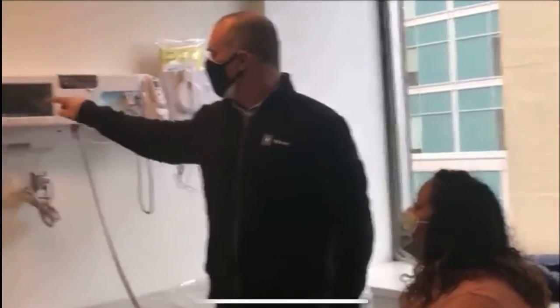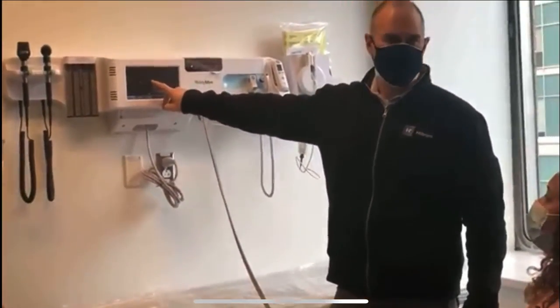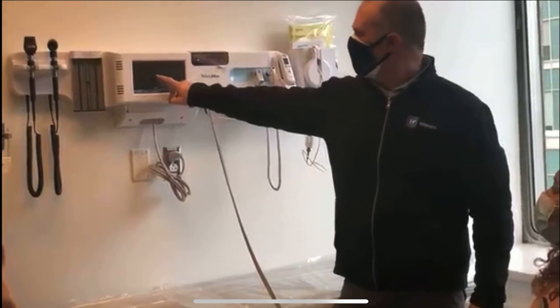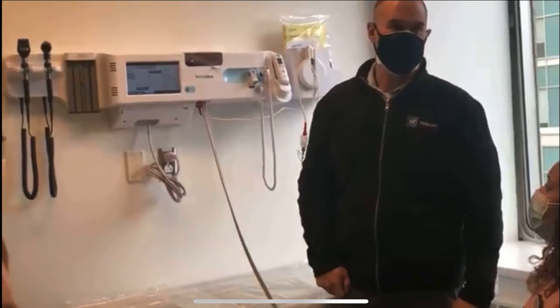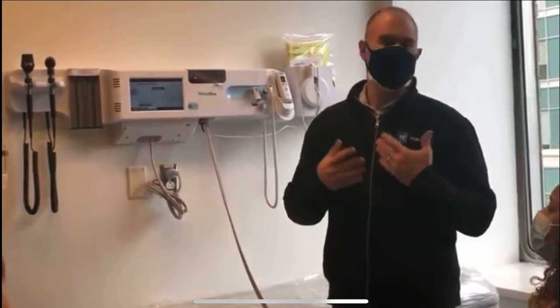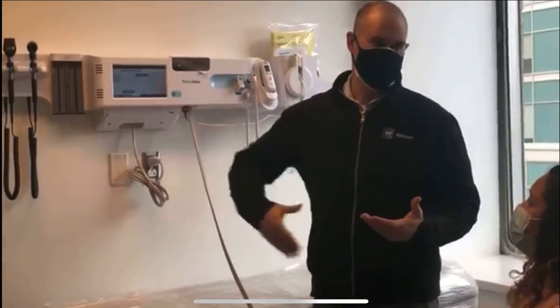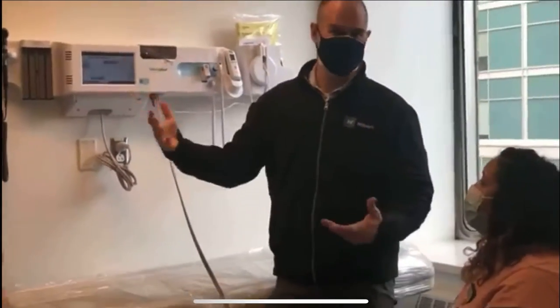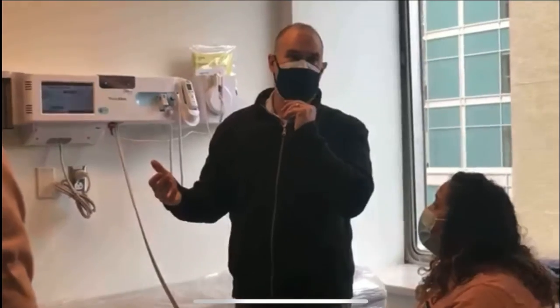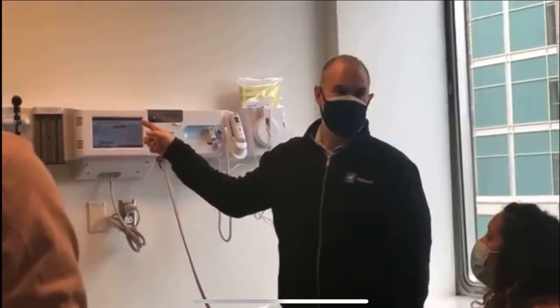The next thing I want to show you is — if you notice right below the start button, there's a little clock button. That is the BP average that I set up for you. It's not for every patient, but I'm sure you get those patients that come in who are anxious, and their first blood pressure reading is really high because of that. This is a really nice way to do multiple readings and free yourself up to do some other things while you go through that process.